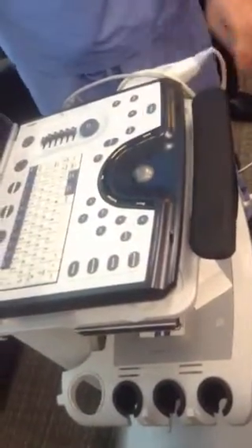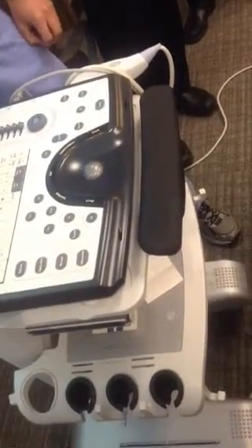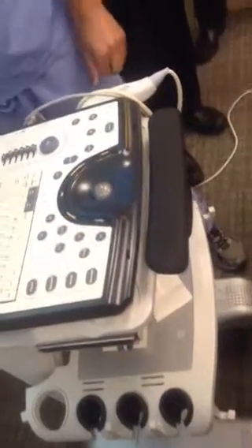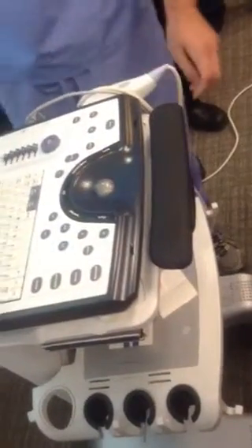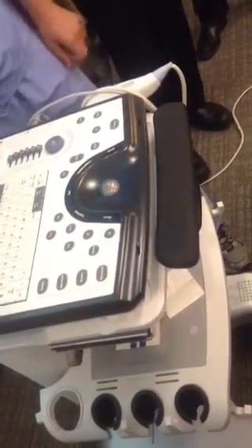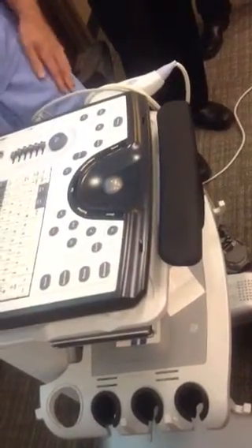Oh, you mean logging into Epic? And you guys know the room, we'll go through all this, the code to get in the door. Right. So I cannot do it in the CICU and then come grab the machine. It has to be in the Echo Lab. No. And if you do all the Epic stuff before, as Scott was saying, turning this on, everything will be there and flow over. Right. And you have to come down and get the machine anyway. Okay, so that's the way to do it.